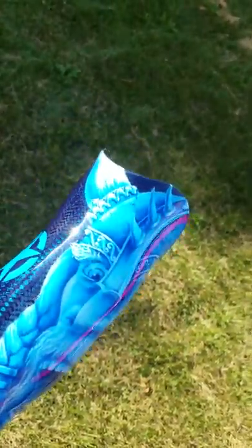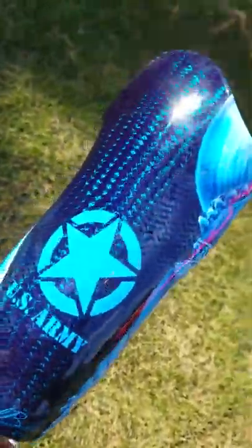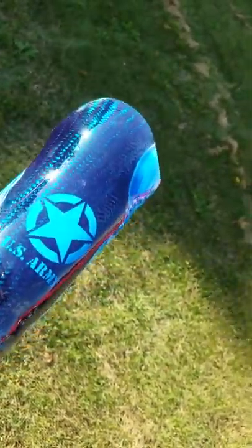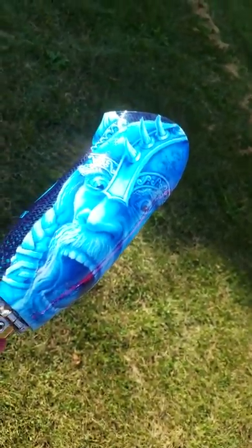That's what I'm hoping to do with the Project War Paint program — to make things unique to that individual for wounded warriors. This is my first sample. I've got another one coming out that's going to be more designed for a female, a little more feminine than a viking. I'll be wrapping that one up soon. This one turned out really nice.